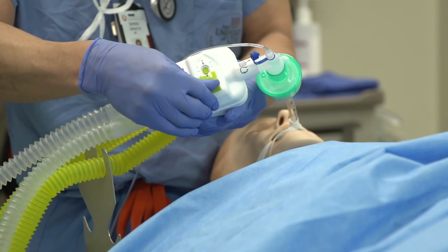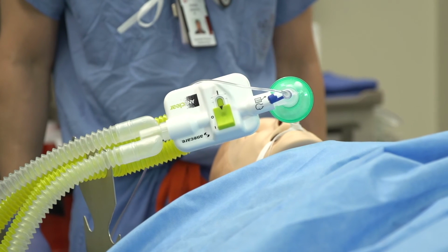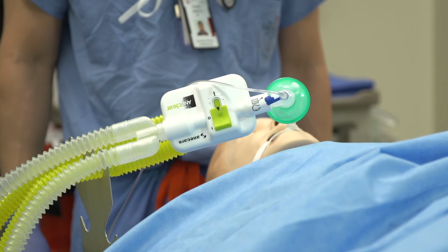Activate ANEclear by breaking the perforated clear tamper seal by sliding the switch forward to the fully on position. Make sure the switch has slid all the way to the activated position and completely covers the forward black arrow. If the switch is not in its complete on position, ANEclear is partially activated and your patient will not experience the full recovery benefits of the device.